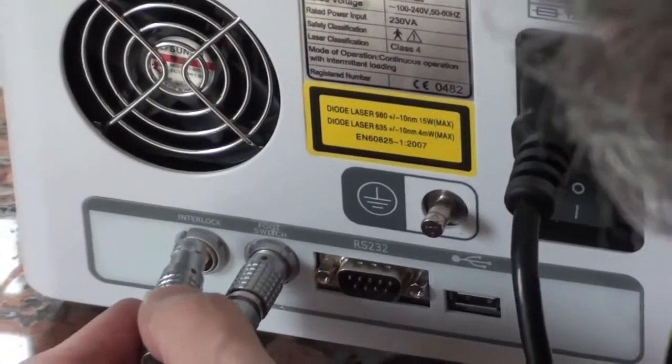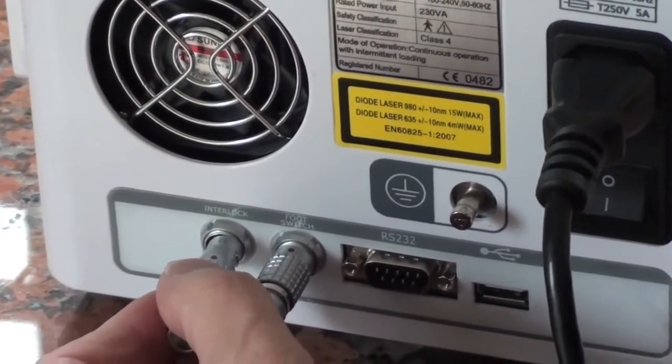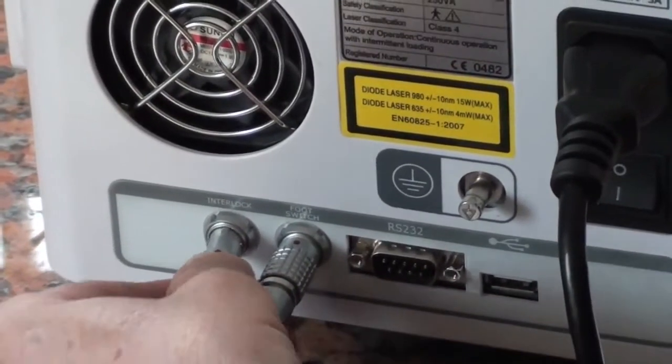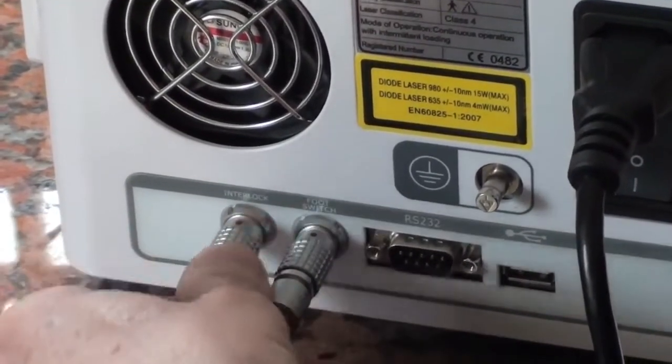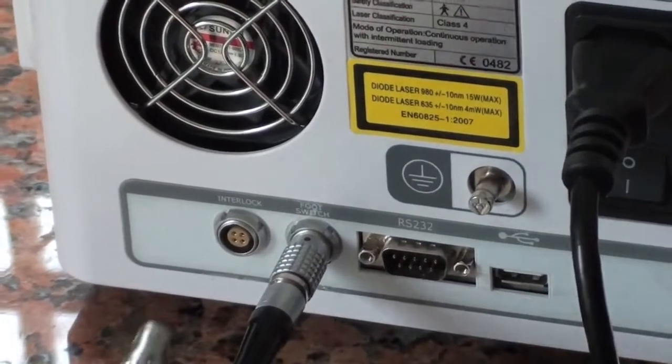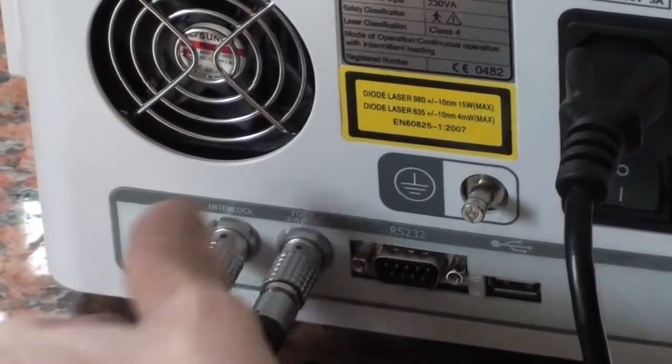Always read the label, it says interlock. The red mark is at 12 o'clock. You push it in, and see how it locks out, 12 o'clock high with the red dot, and in.